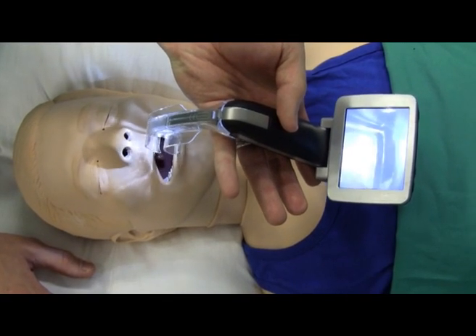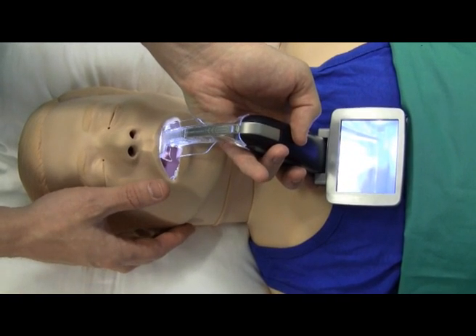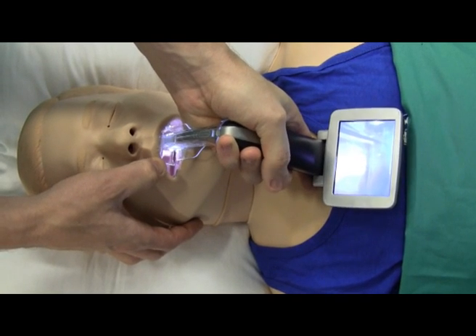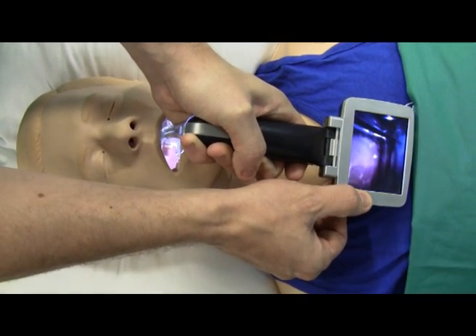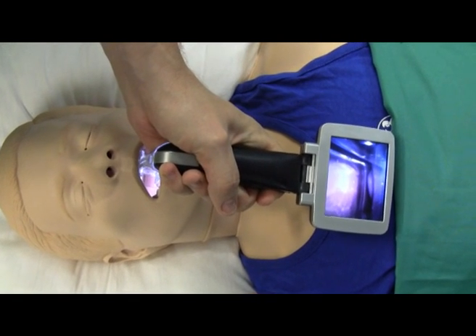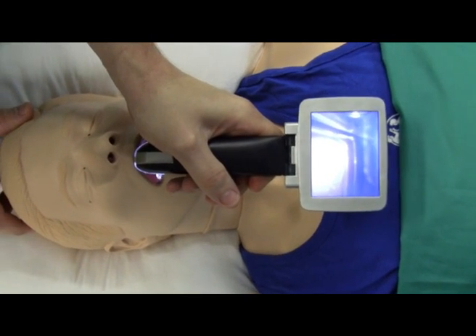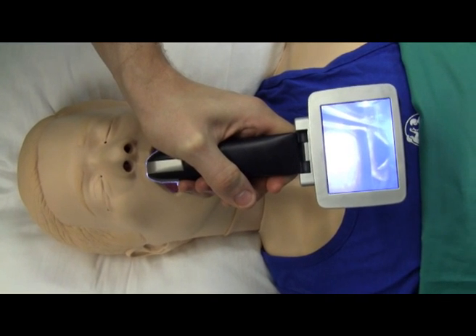With your screen looking straight at you, advance the tip of the laryngoscope blade slowly and carefully into the mannequin's mouth, being careful not to strike the lips or the teeth. In the midline, slowly advance the blade whilst you look into the mouth. When the blade's about halfway in, turn your view to the video screen. The first structure that you might see is the epiglottis. As you insert the blade further, the idea is to lift up the epiglottis so that you see the glottis — and there are the vocal cords, the two white lines in your view.